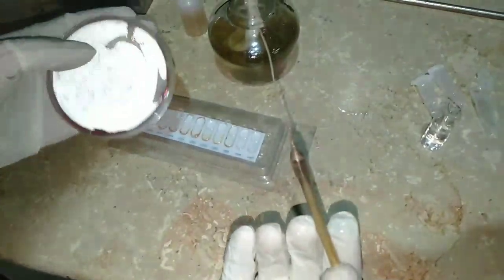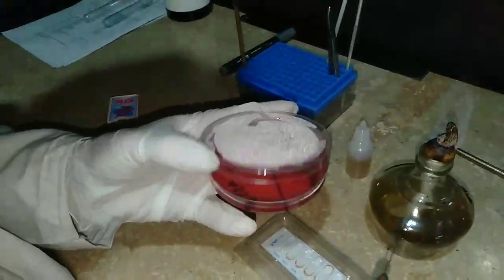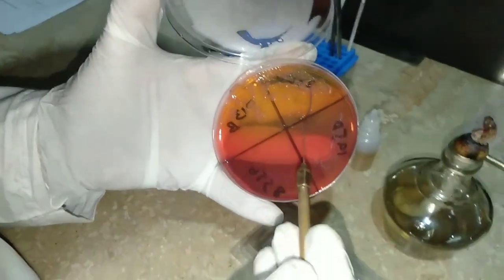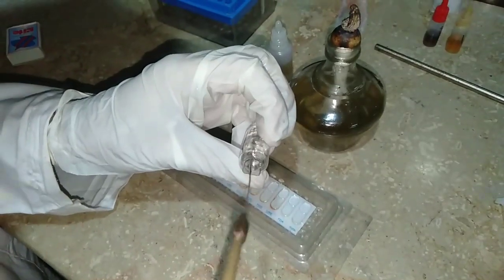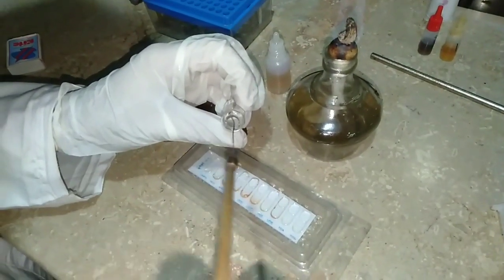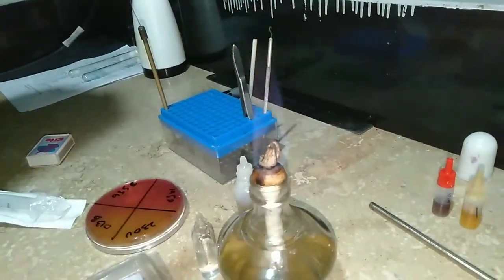After that we take the wire loop, which is heat-sterilized — red hot, as you can see, completely sterilized. Then we cool it down by shaking it in the air near the flame to avoid contamination, and touch it at a specific cool point. Then we take a bacterial colony and mix it into the sterile water. We then re-sterilize the wire loop red hot before and after use — this is really important.